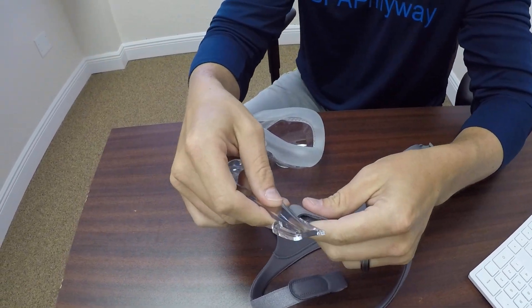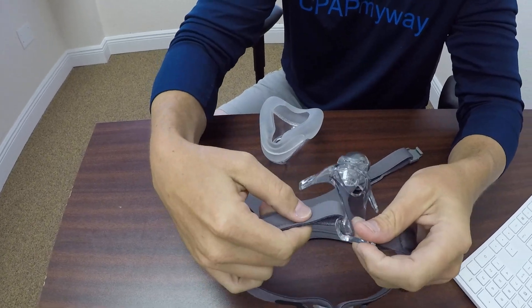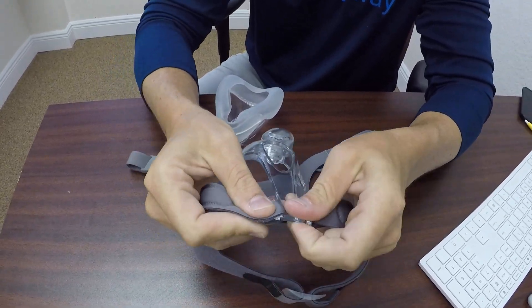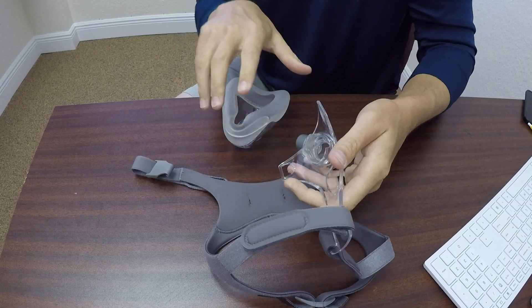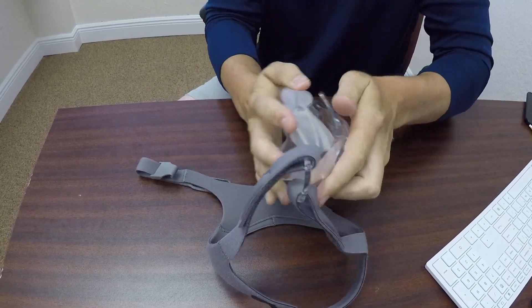It obviously reassembles the same way. So slide that on, slide that on, and then of course your cushion pops right back into the actual frame of the mask.